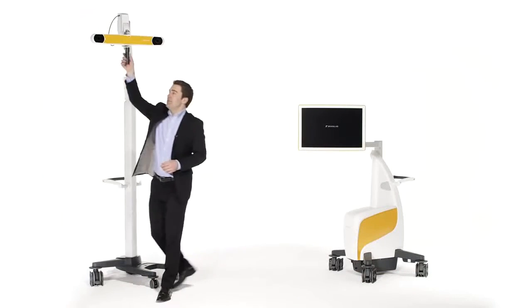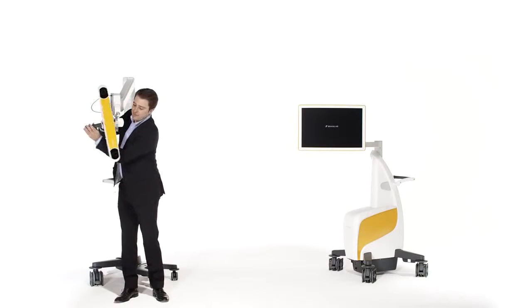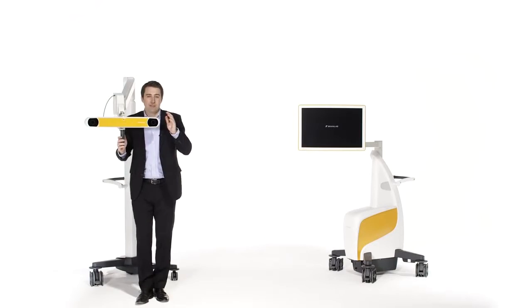The Curve's single display camera can be positioned horizontally and vertically. The camera is equipped with a laser pointer.